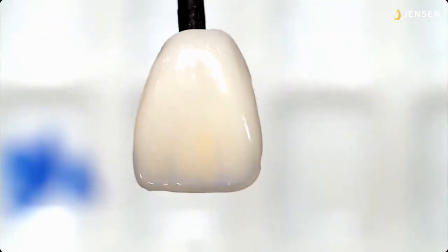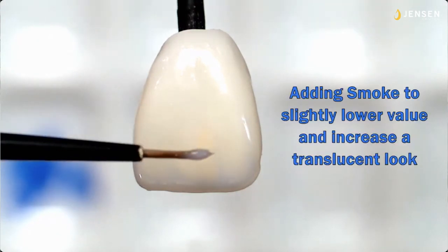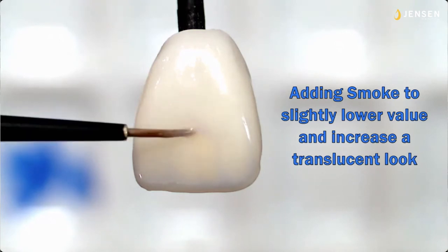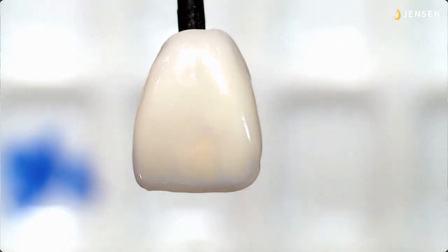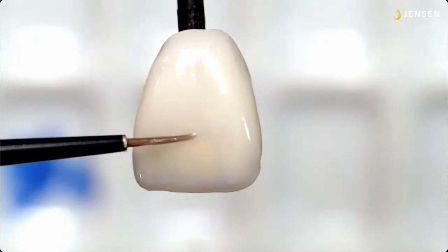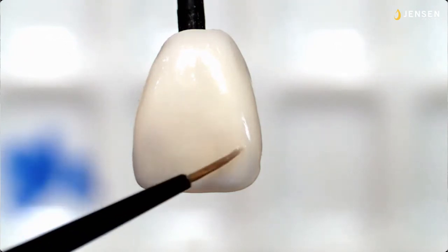And one part of the kit works with the other part of the kit. The old, you scratch my back, I scratch yours. Well, all these colors tend to really enhance each other. So now I'm going to apply a little bit of smoke to slightly lower the value and increase the translucent look. Not that you have to, but I'm just showing that you can float all these colors on. And you can do it at different procedural times when you're applying the MiYO.